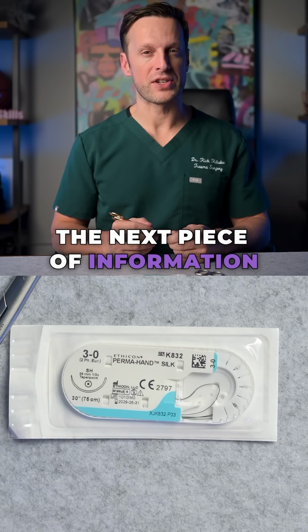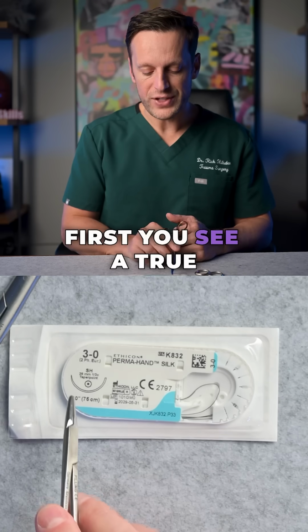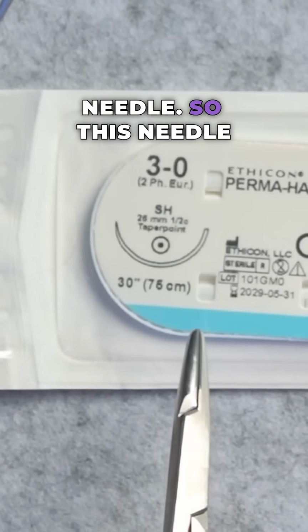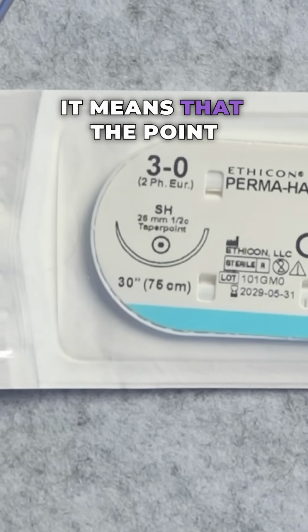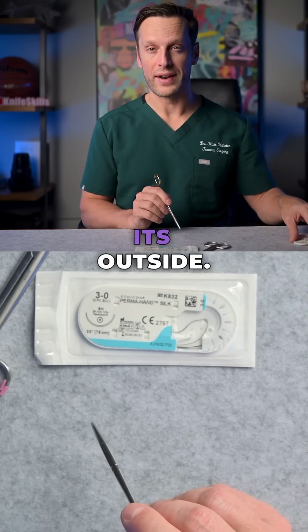The next piece of information I want to point out is the needle. There's two things you see here. First, you see a true to scale representation of the needle, and then you see a cross section of a needle. So this needle is called an SH, which stands for small half. The dot within a circle means that the point is at the very center of the needle, and the needle otherwise is round on its outside.